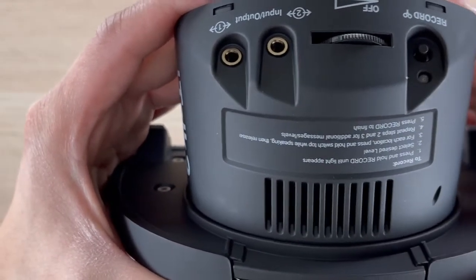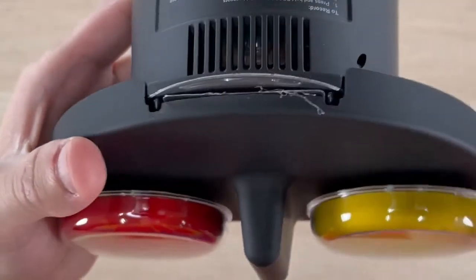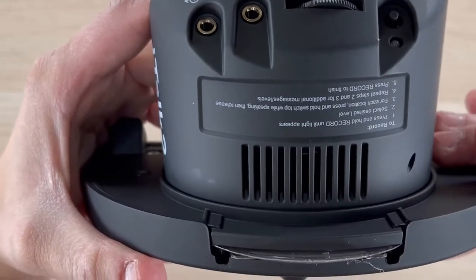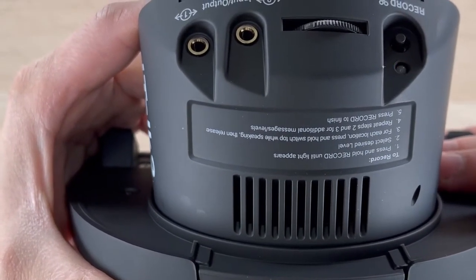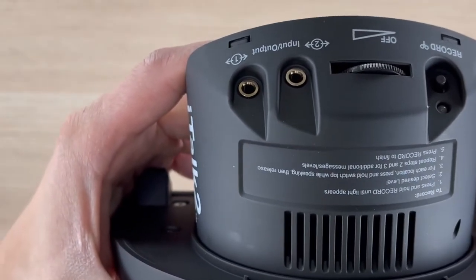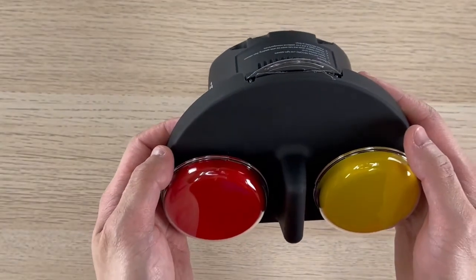To verify that all messages have been erased or cleared out, click on the switch tab and the LED light will blink orange. Now your device is clear of all messages and ready for new messages.